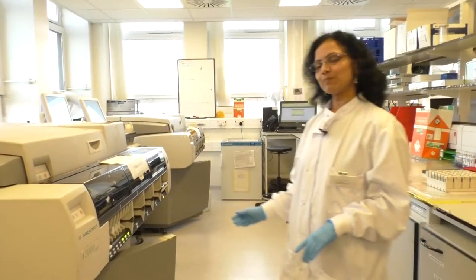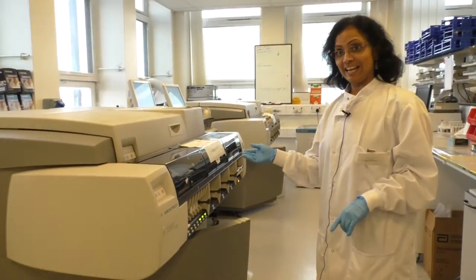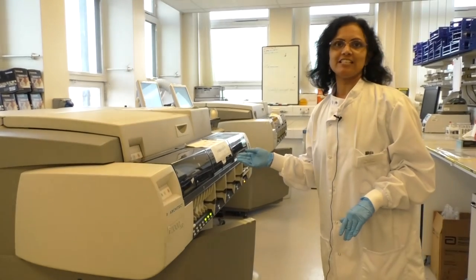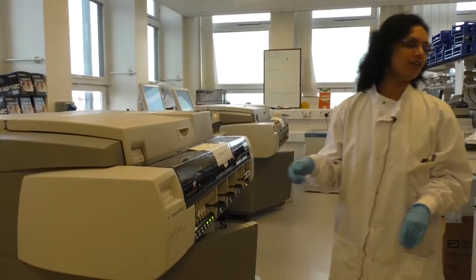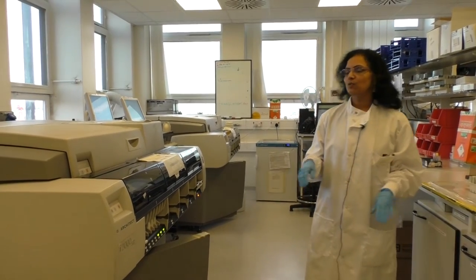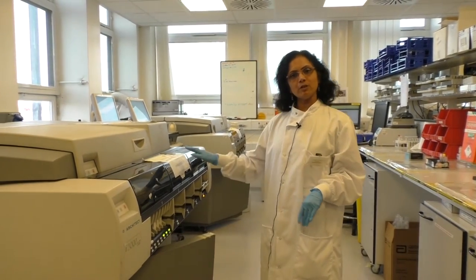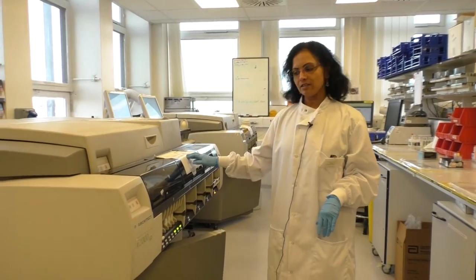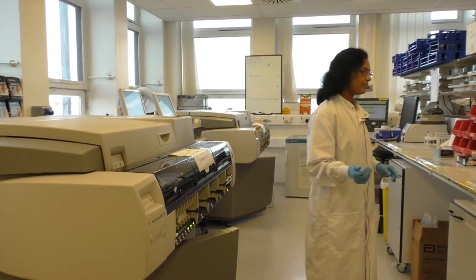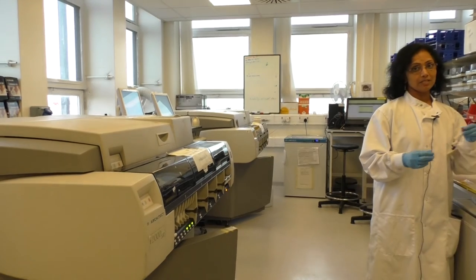This is the Architect C8000, which runs the complement C3 and C4. It works on the immunoturbidometric assay, and once we get the sample, we need either serum or plasma.